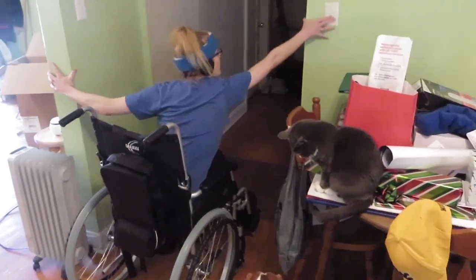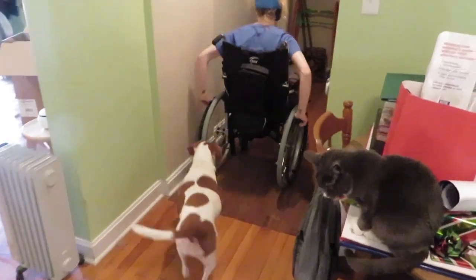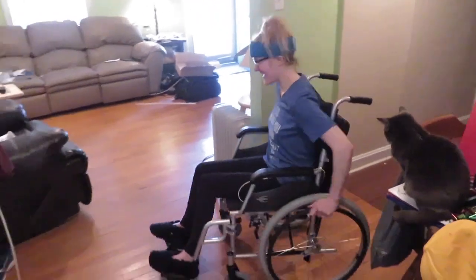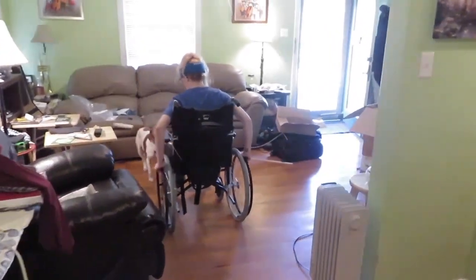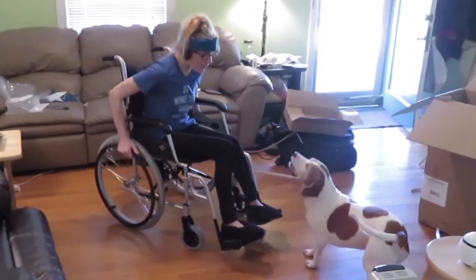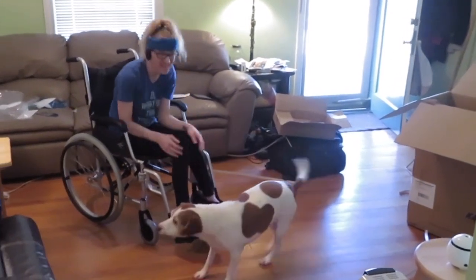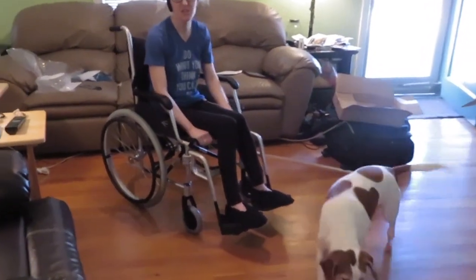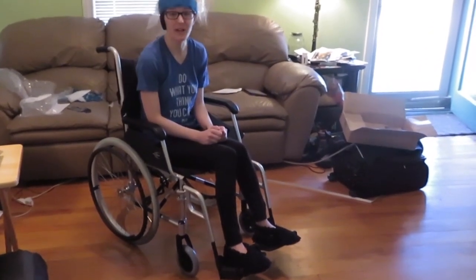There's Lucy, there's June — let's see what I'm doing. Let's take it down, turn it around, and bring it back. As you can see, pretty good in tight spaces, and pretty easy to use with these handlebars. First impression of the wheelchair — I'm loving it. It's comfortable even without the cushion. Even though I'm going to get the seat cushion for extra padding, it's pretty much exactly what I was needing.